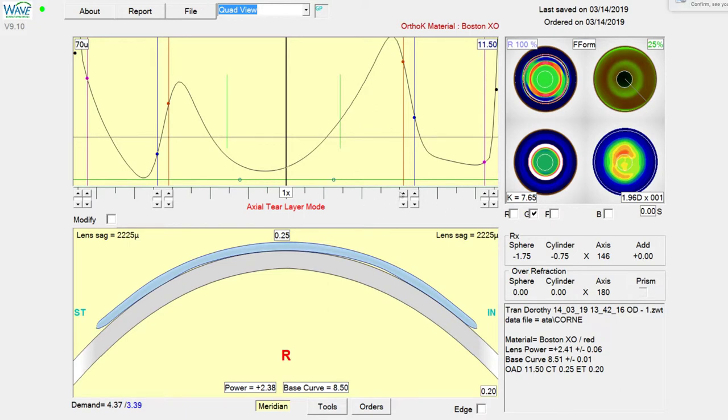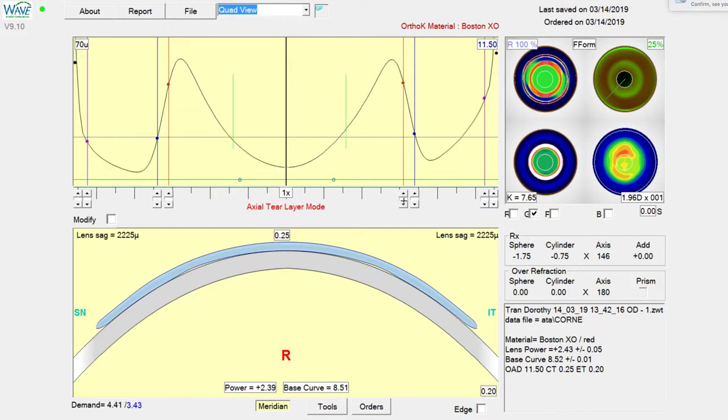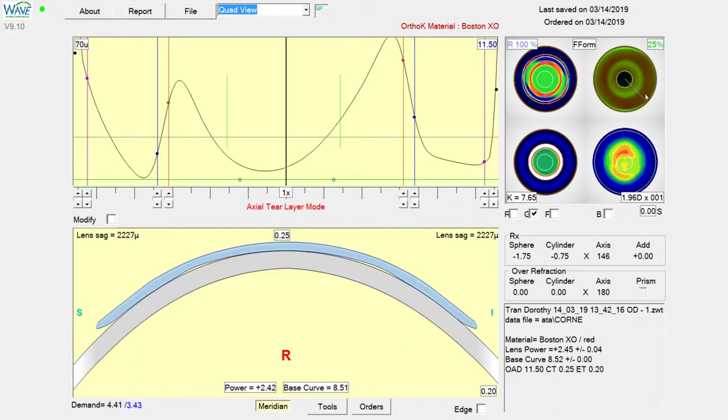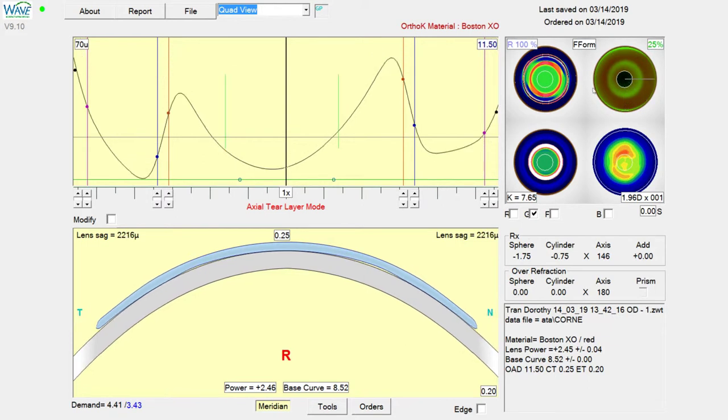Okay, so this is a G-SIM lens, which means whatever we do in this meridian, this one, this one, and this one will be mirrored to the other side. So as long as we've taken care of these four, then we can be assured the other four are also fairly uniform. And this one is now complete and ready to order.